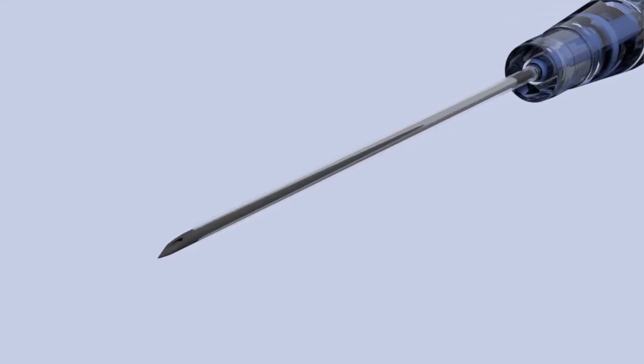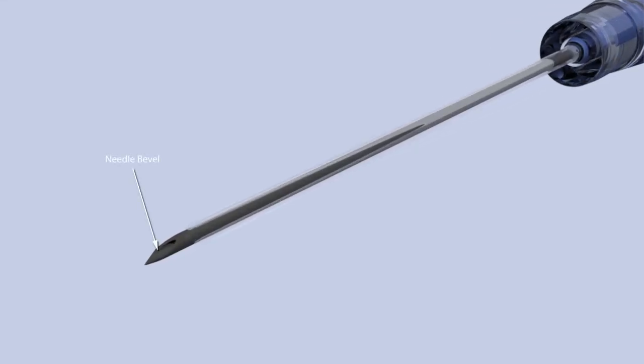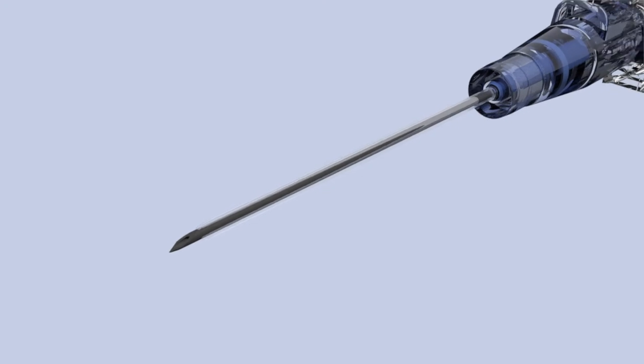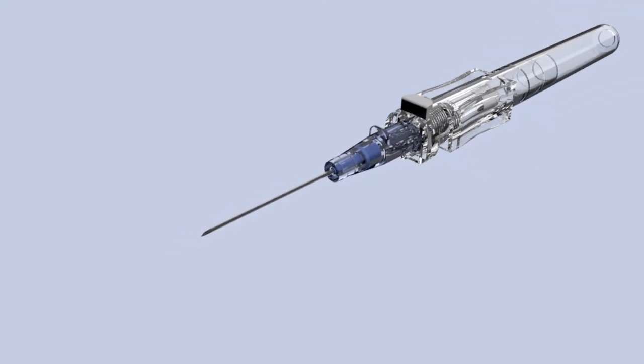Visually confirm that the bevel of the needlepoint is facing upward and that the leading edge of the catheter cannula is positioned just shy of the needlepoint bevel prior to approaching the patient. Note that our needlepoint is triple facet back cut and polished for multi-angle insertion.